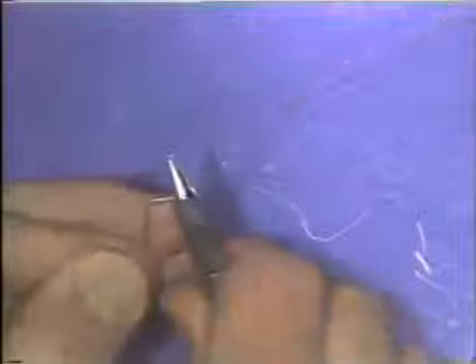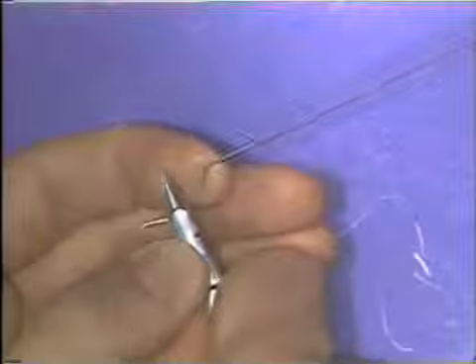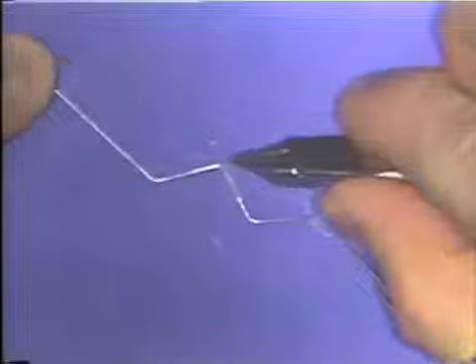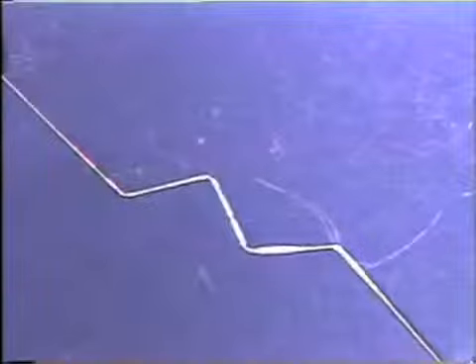You can grasp the wire at any point, actually, on this side of the point that's contacting the table and bend the wire up out of the way. Now, when that is done, we can visualize then that a simple bend at this point right here, the original pencil mark point, will flatten that next segment of the wire.